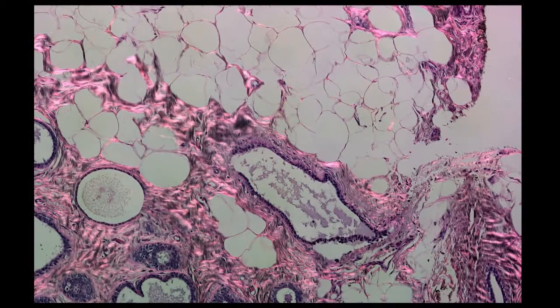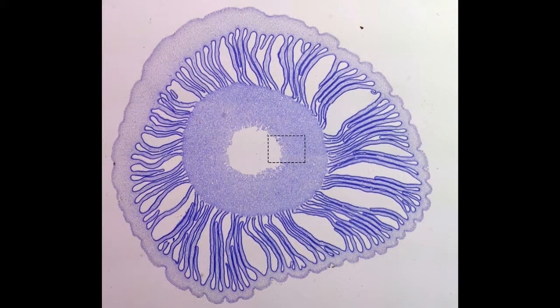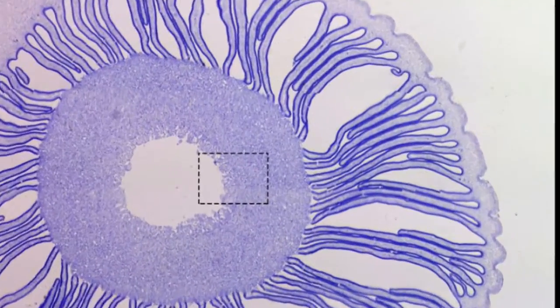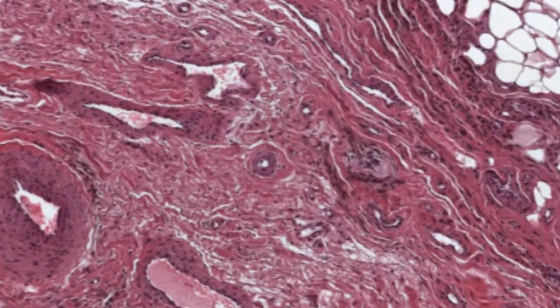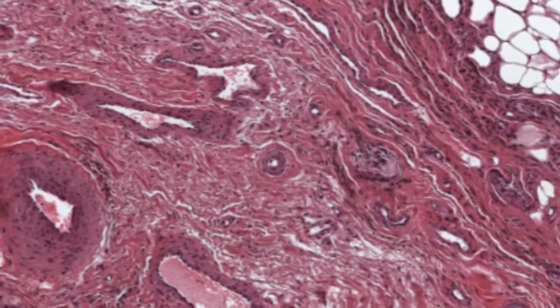This is a breast biopsy tissue specimen. This is a mushroom stem specimen and we'll just zoom in. We get pretty extraordinary detail and here is another breast biopsy specimen and we can zoom in and see cellular level details.